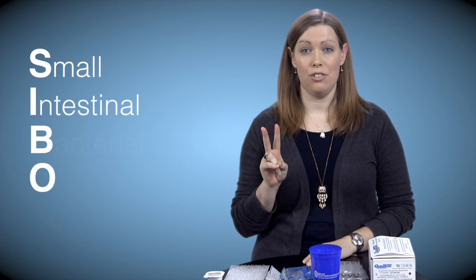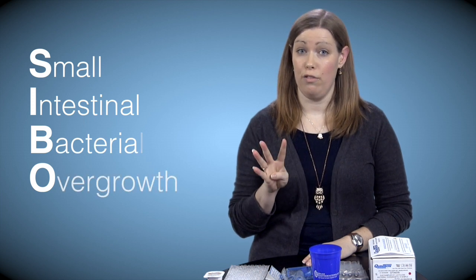Small intestinal bacterial overgrowth. If your doctor asks you to complete a breath test for lactose or fructose, I will review that later in this video. These tests help us detect whether there is any presence of small intestinal bacterial overgrowth.